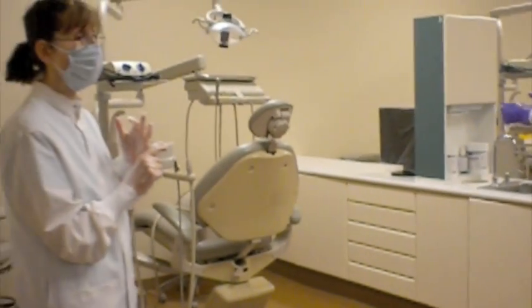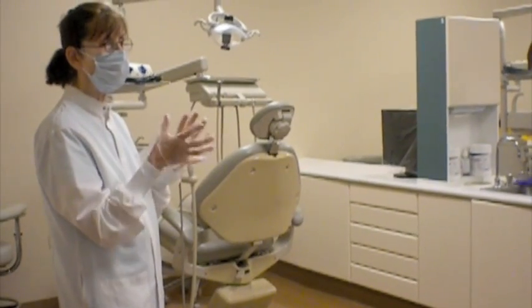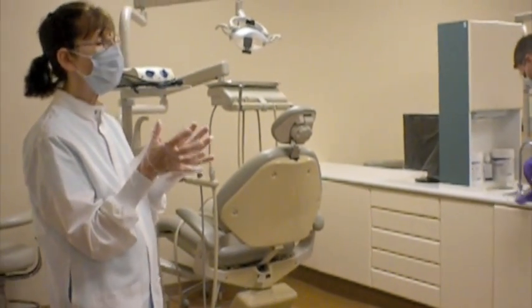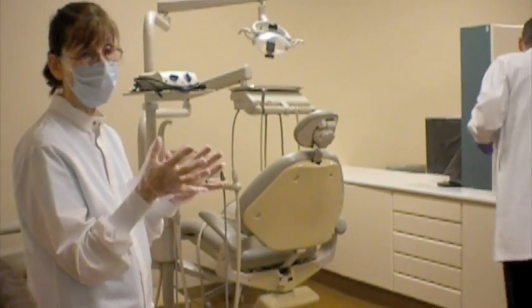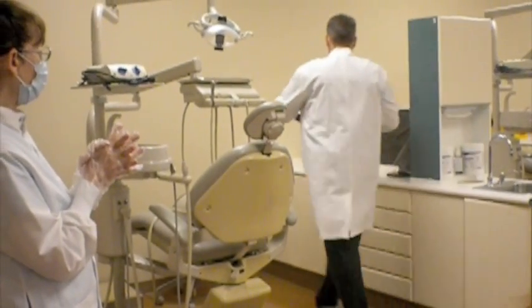He's going to look for an expiration date on it to make sure that it's still effective, and he's also going to slightly agitate the container to allow the disinfectant to work through the wipes effectively. So paper towels onto the countertop.